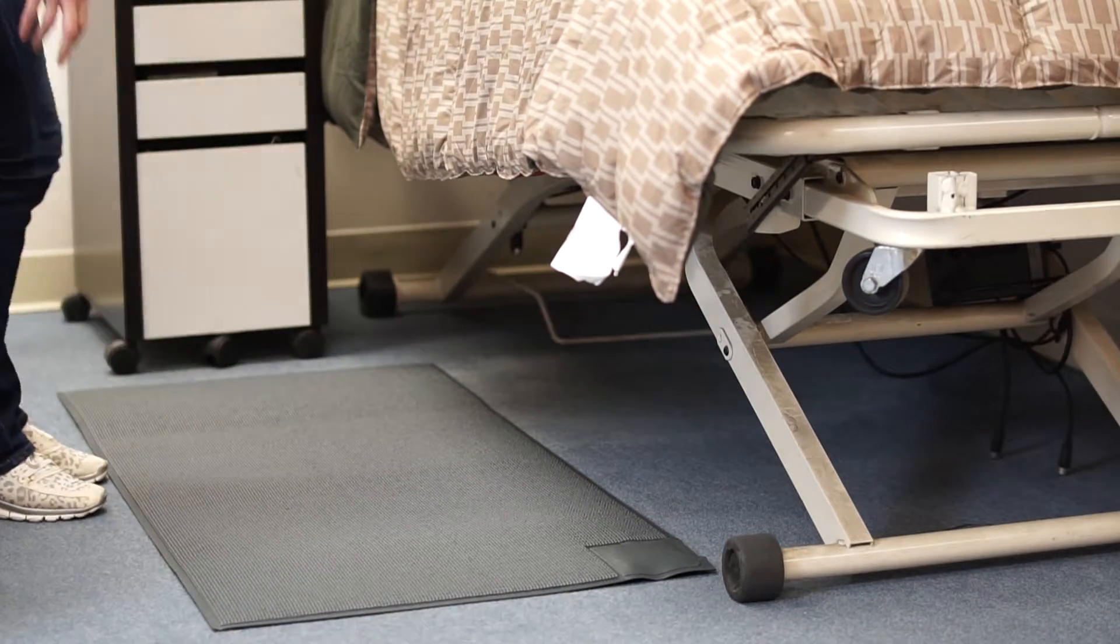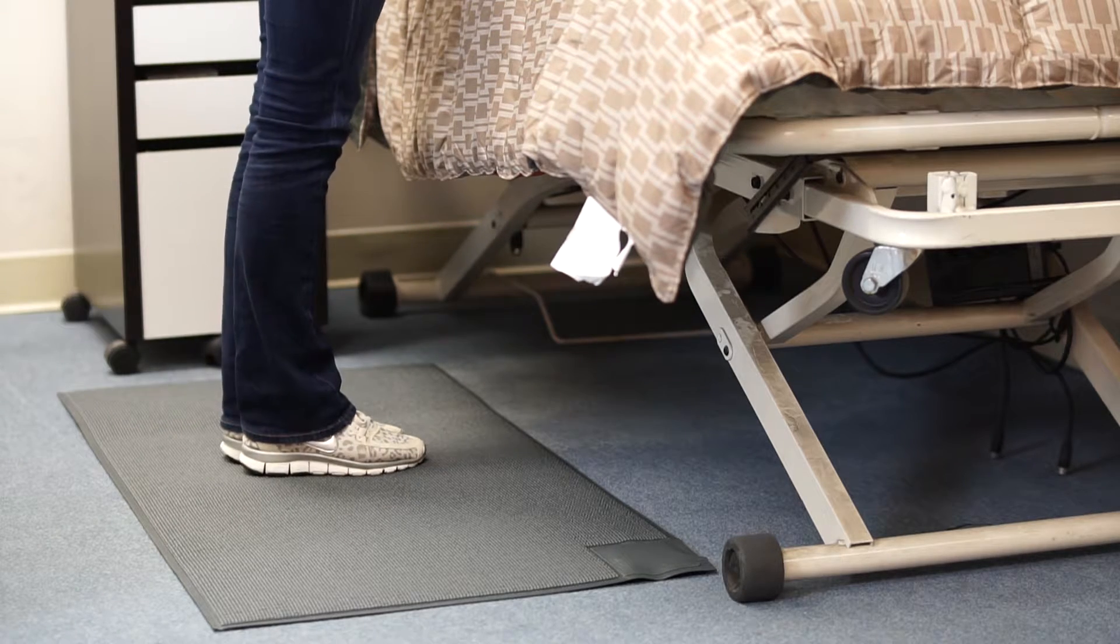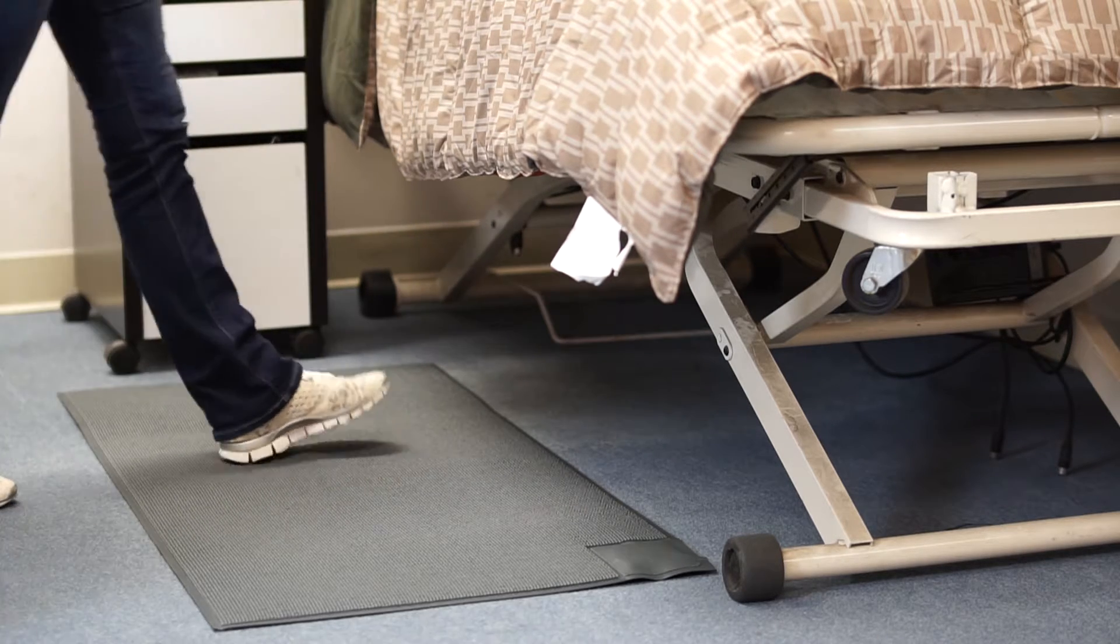To activate your floor pressure pad, step onto the mat and then step off of the mat. This will send a signal to the receiving monitor.